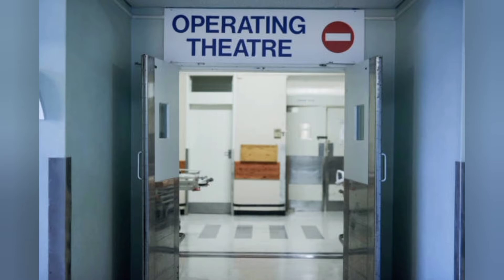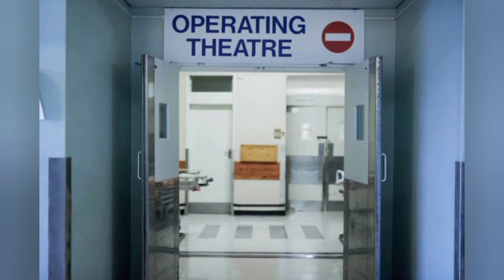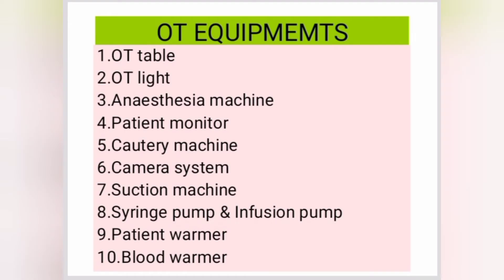OT is an operation theater where minor to major surgeries get performed. For all types of surgeries, from minor to major, I am going to guide you about which equipments are used. Here is the list of equipment.